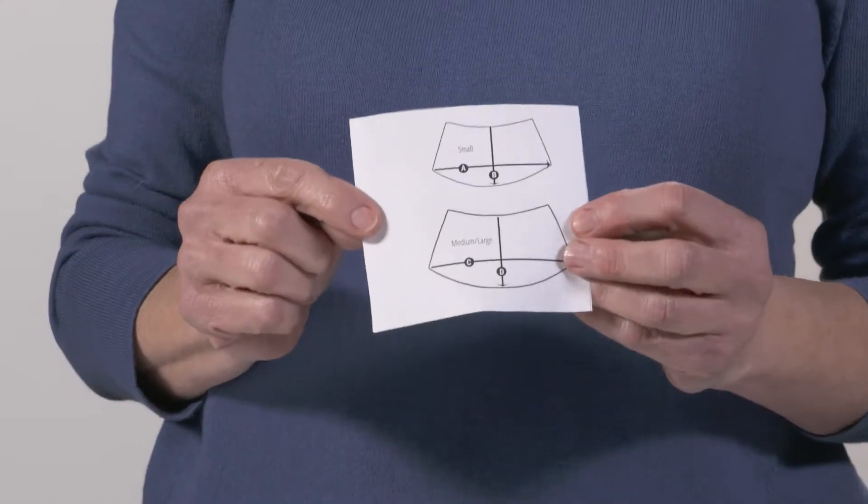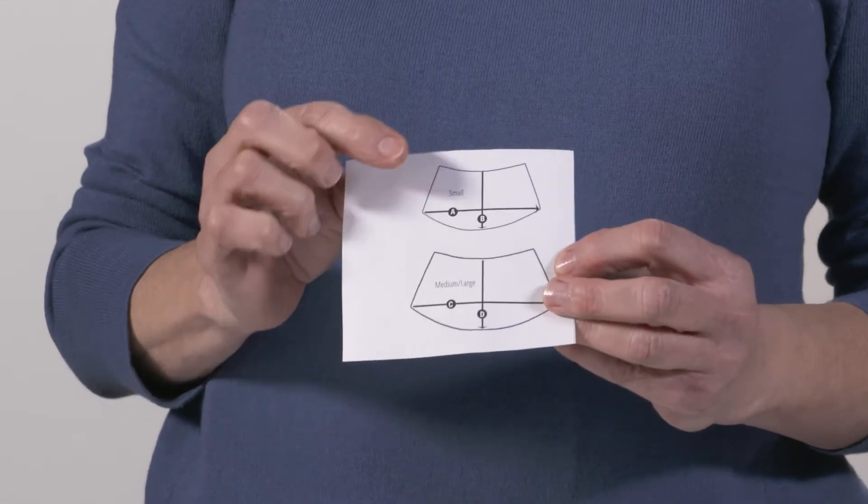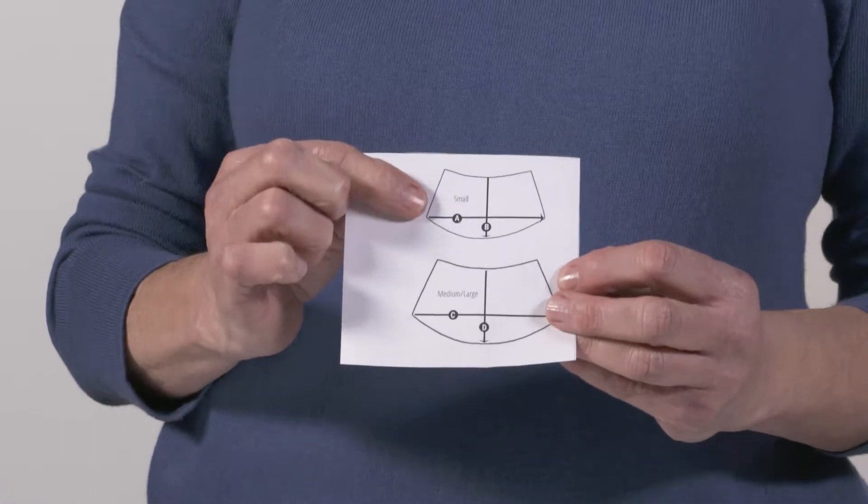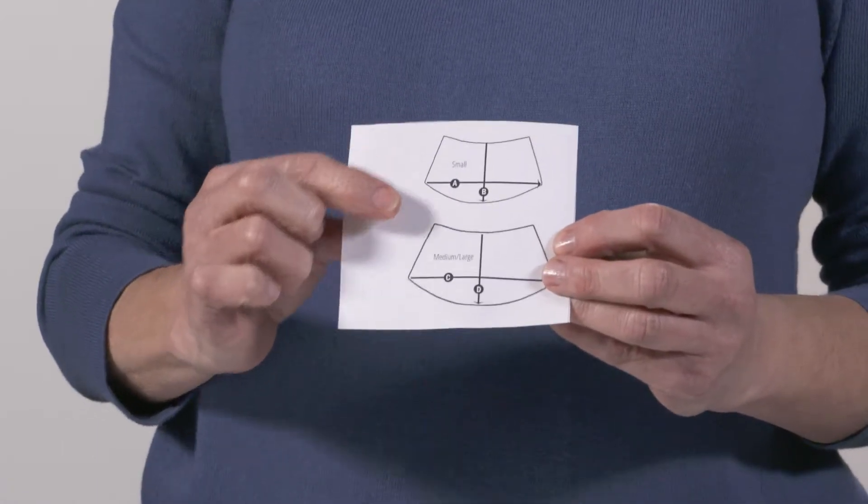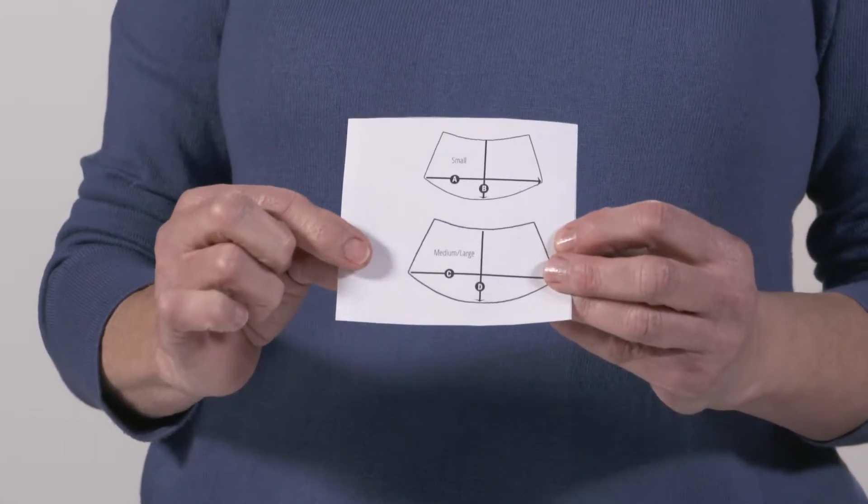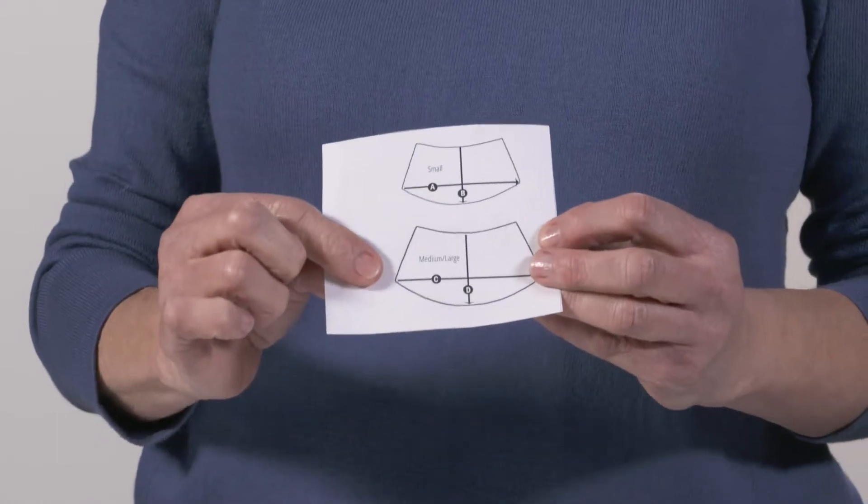We have created paper patterns to match the sizes of the CMC Care brace. If you're wearing the small brace, cut out the small pattern. If you're wearing either the medium or the large, cut out the medium-large pattern.